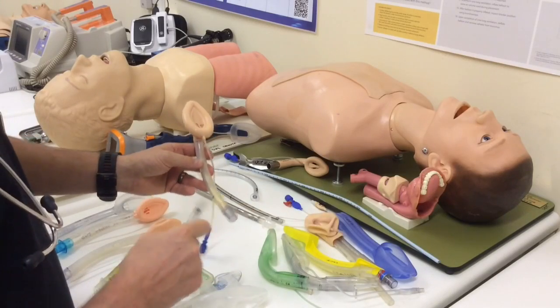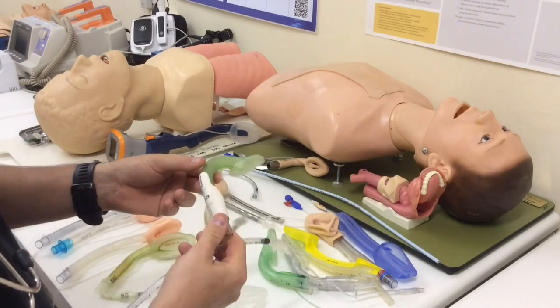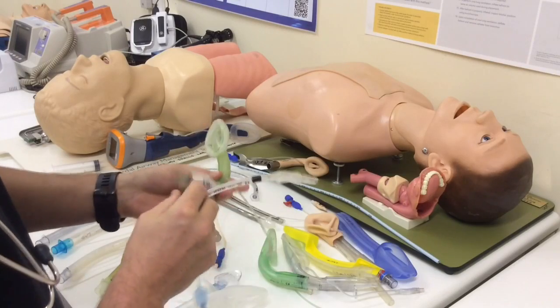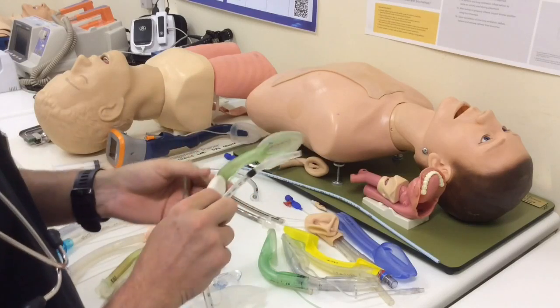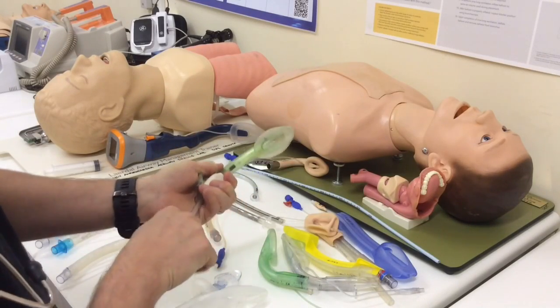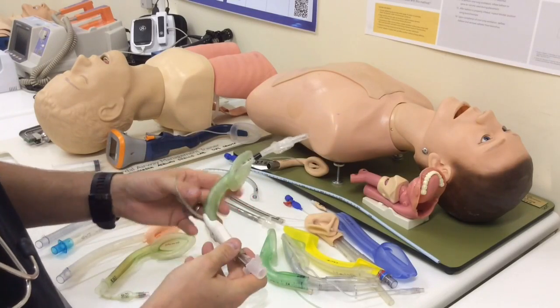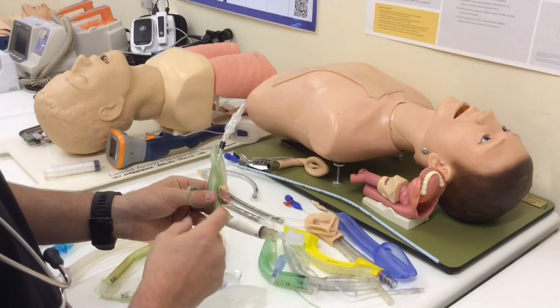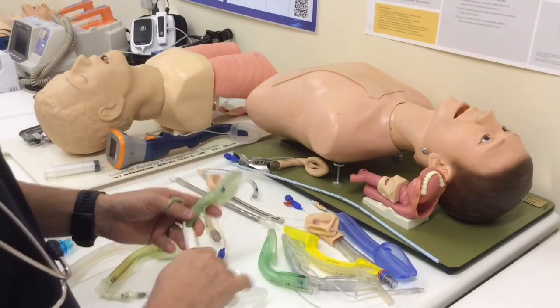A lot of newer devices have addressed this issue and made a device with a wide internal bore which allows you to pass an endotracheal tube. Here's an Ambu Aura-i, and this is a size 2.5 — for a patient of 20 to 30 kilograms, a lot smaller than that device's patient. You can see I'm able to pass the endotracheal tube through without too much difficulty because it's been designed with a wide bore. However, you'll notice how straight the tube comes out the end — this is not designed to allow blind intubation with any good success rate. You need a fibroscope for guidance.